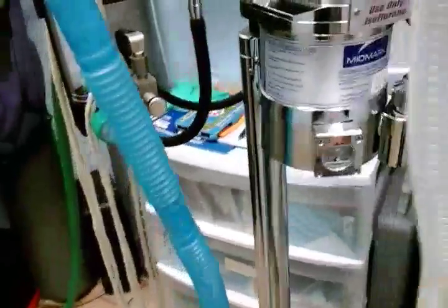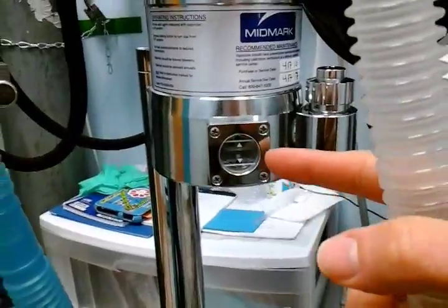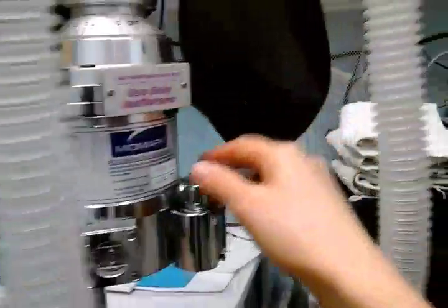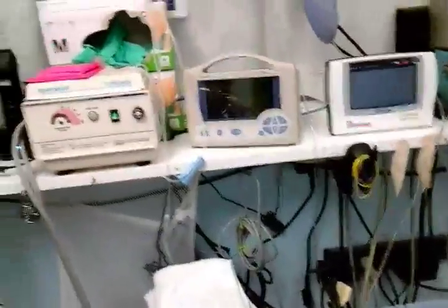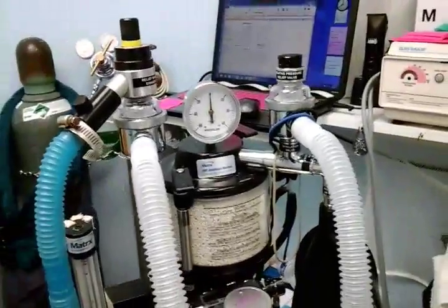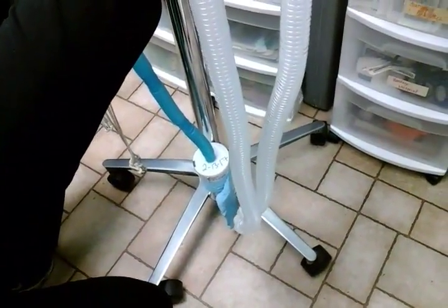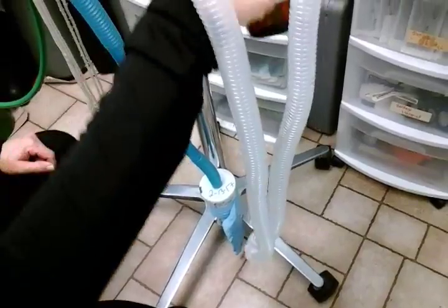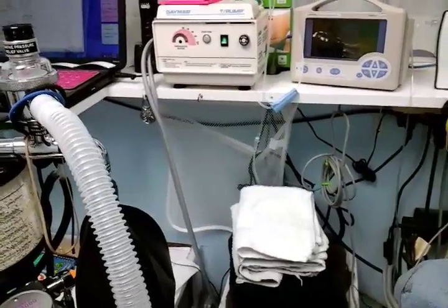When you do that, you want to check your anesthetic level in that window down there. And I'll normally just make sure it's full for the day. It goes into this little reservoir. Screw it off, screw it on. For the anesthetic machine, you would probably also want to check to make sure that your soda lime and your clean air canister don't need to be changed. For that, you look at the date on the bottom of the canister down there. It needs to be less than 4 weeks out, so change it every 2, 3, or 4 weeks as needed.